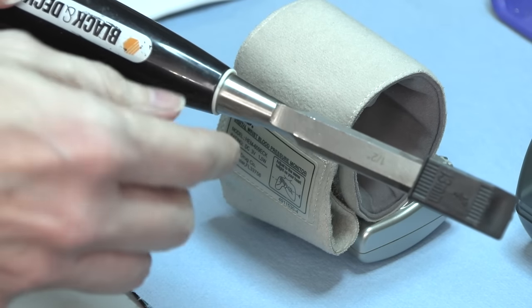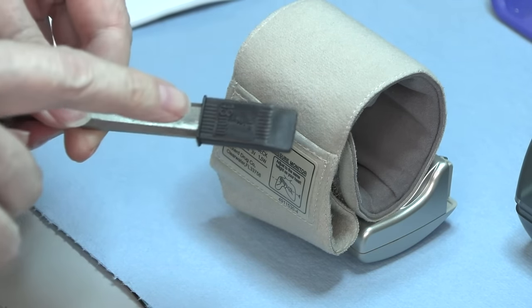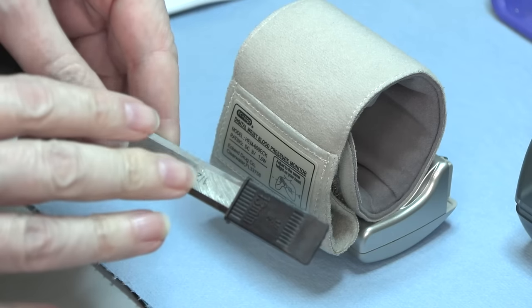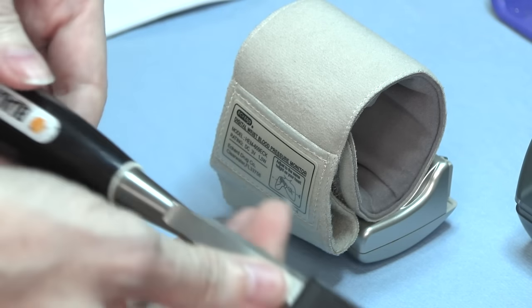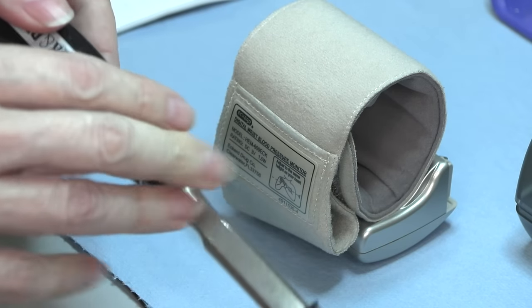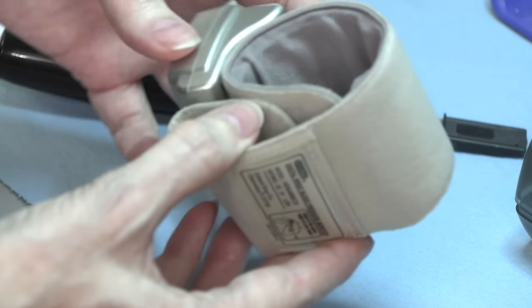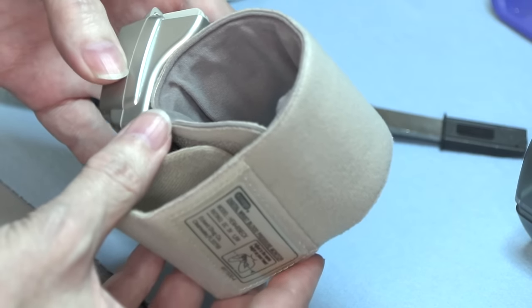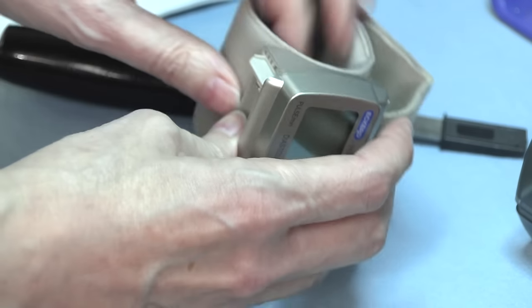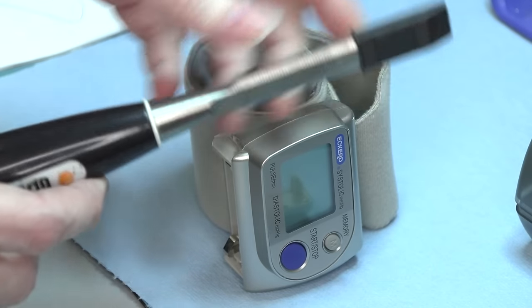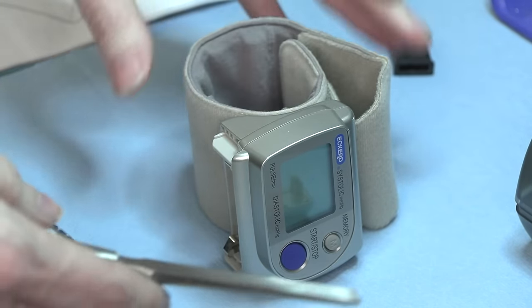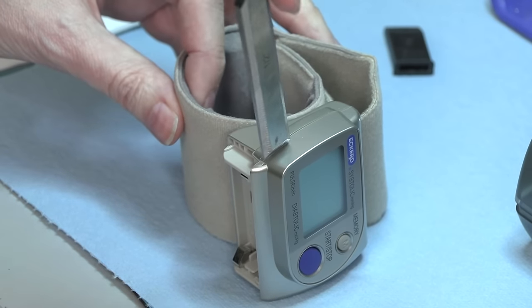Trusty chisel. And people who do woodwork always complain when I use a chisel to do this work, but this is my prying chisel. I have very fine wood chisels at the woodshop that I do not do this with, but it's always good to have a very sturdy prying chisel just for doing stuff like this.